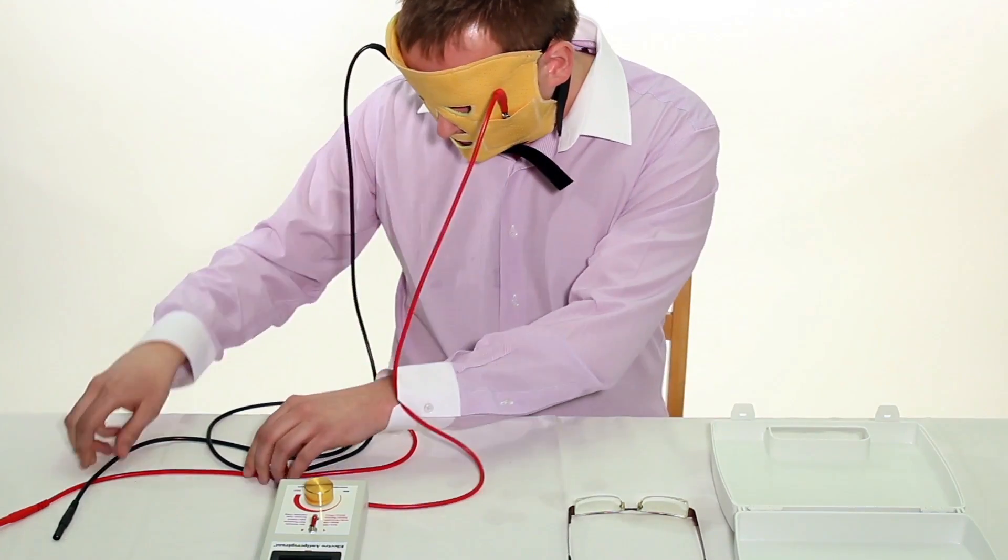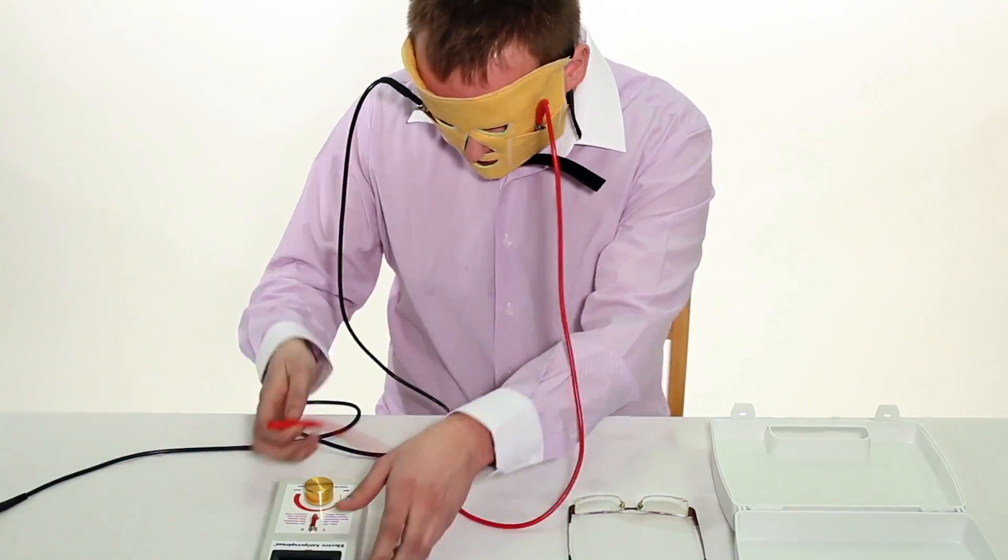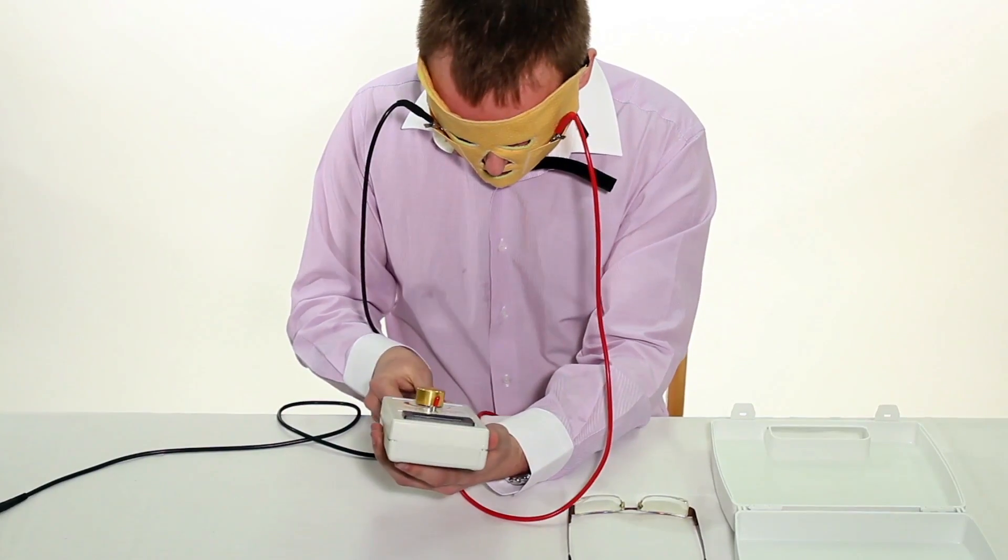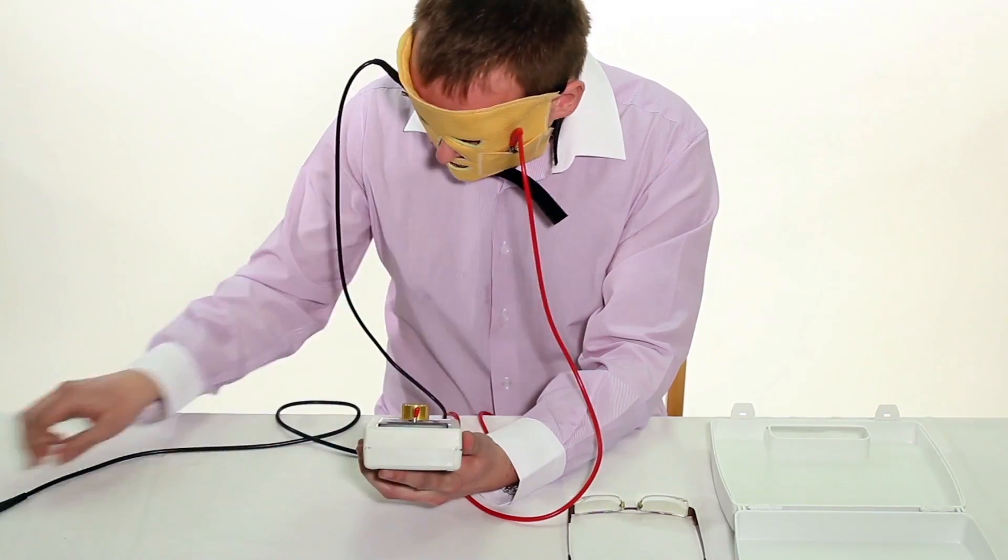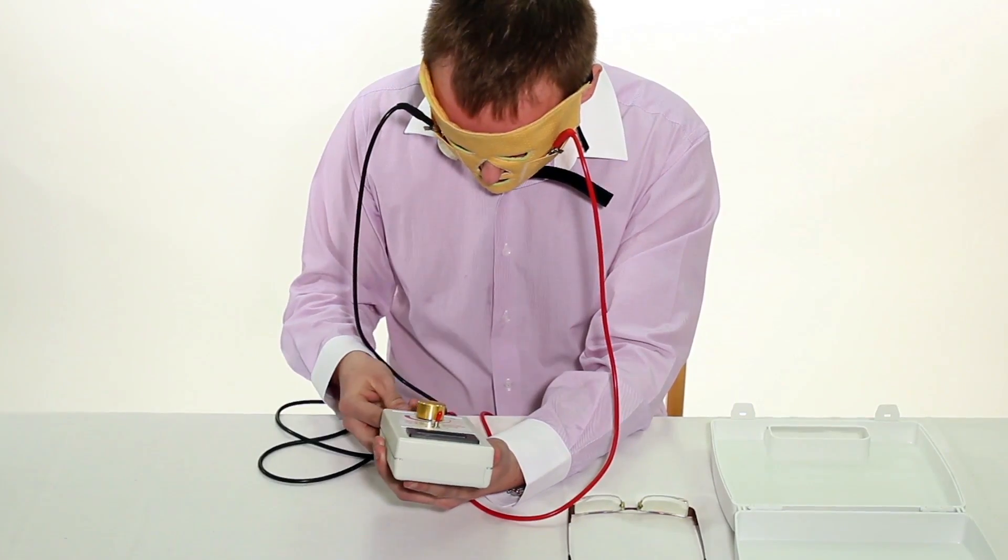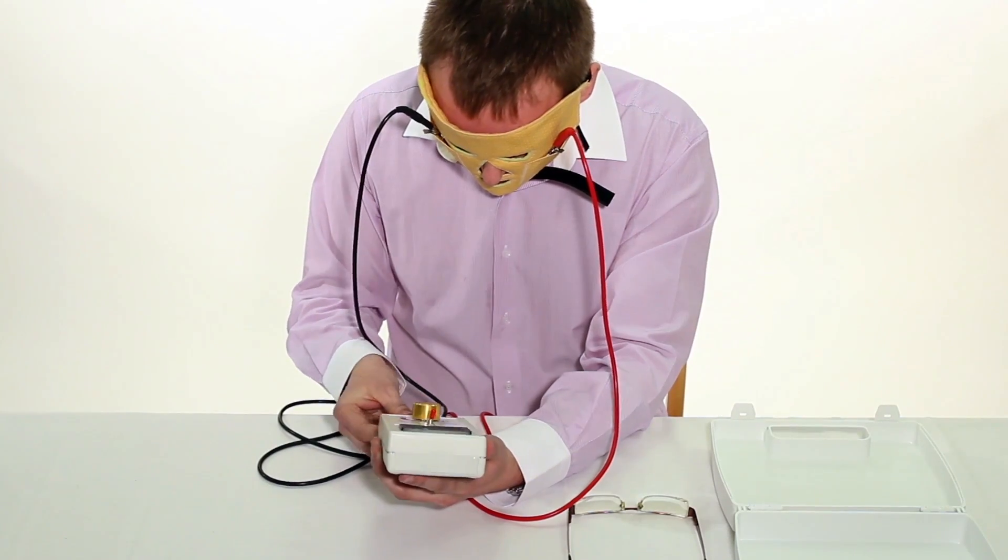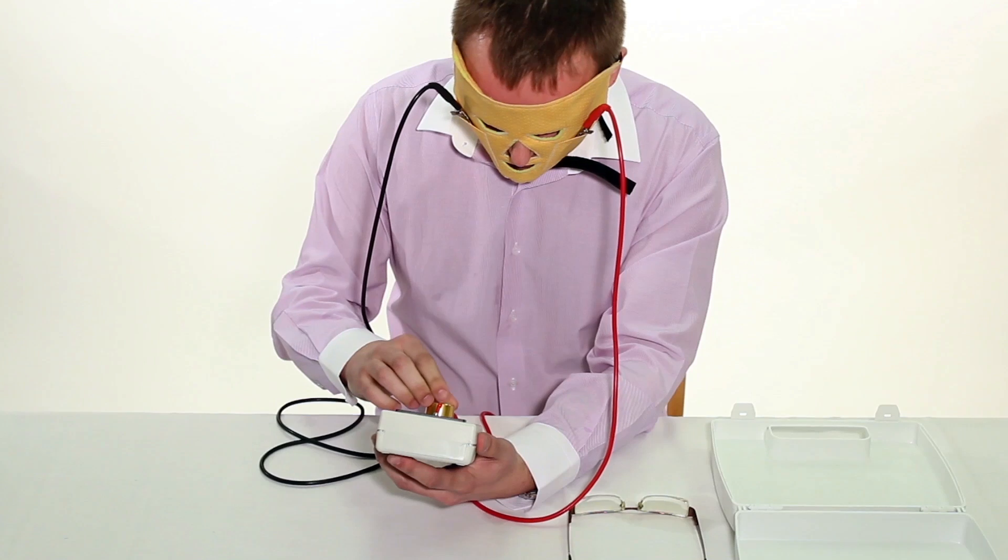Before connecting conductors to the electro antiperspirant device, read the attached instructions very carefully and follow the advice that you find there. It will enable you to achieve the desired results quickly and effectively.